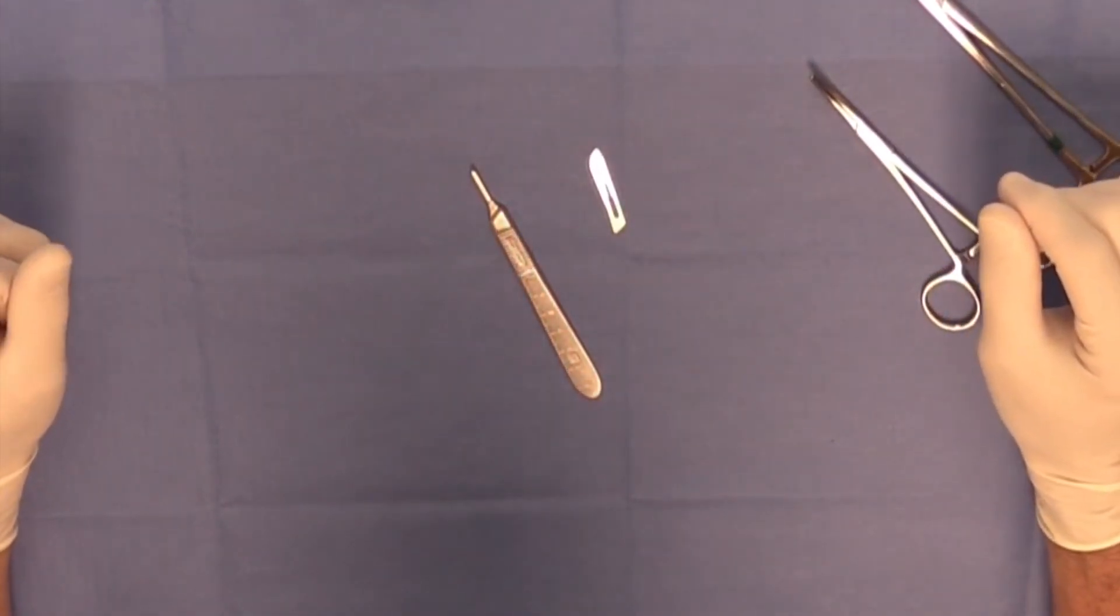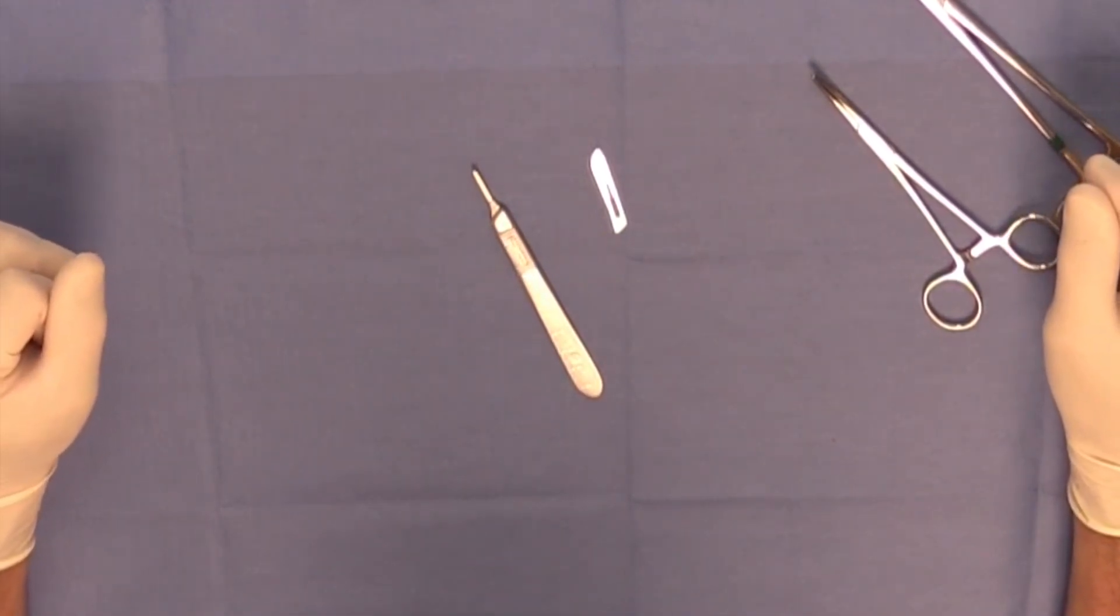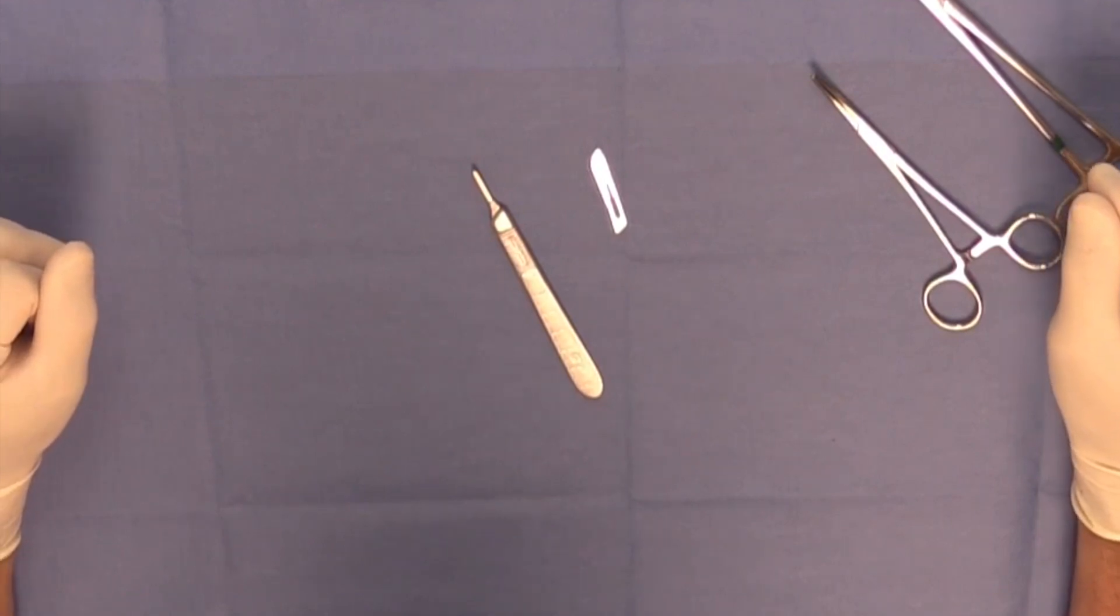While not a required skill in this course, something that you need to learn for your surgical life would be proper application of a scalpel blade onto a scalpel handle.